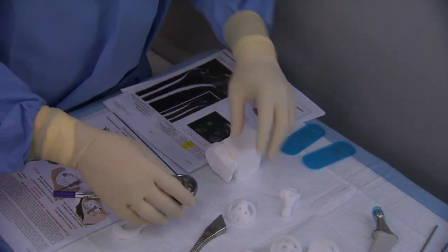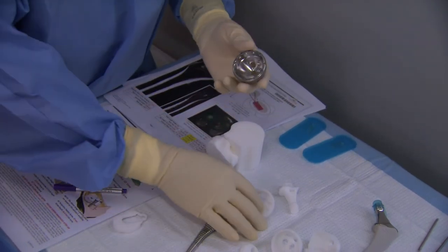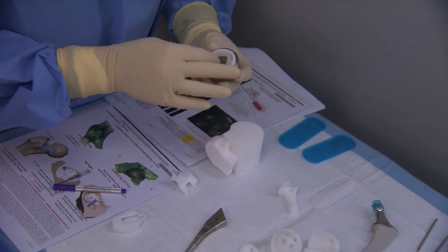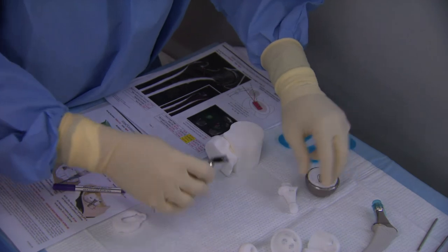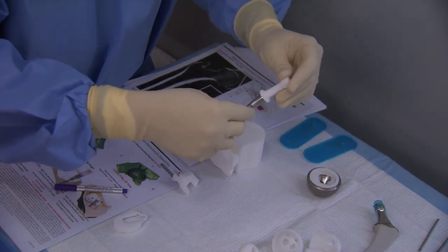There are also several jigs that are made to perform trialing. There's an acetabular trial, and then there's the femoral neck trial, which goes into the broach and clicks in securely.